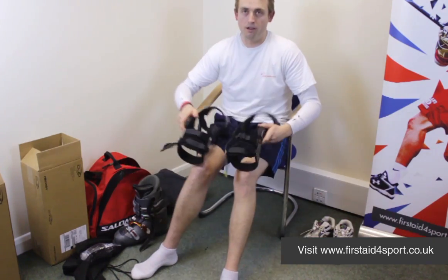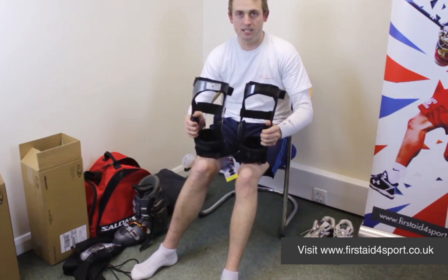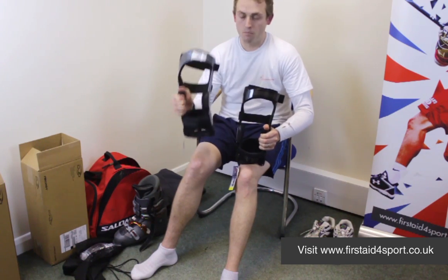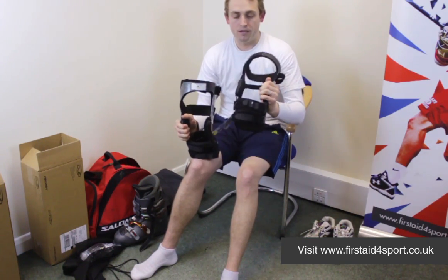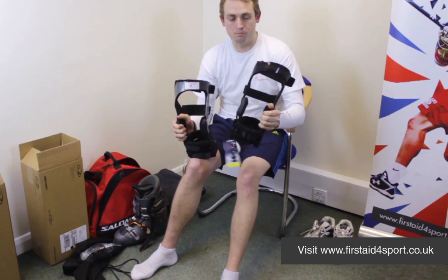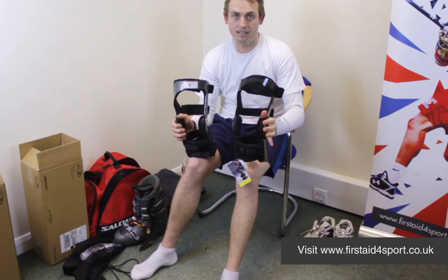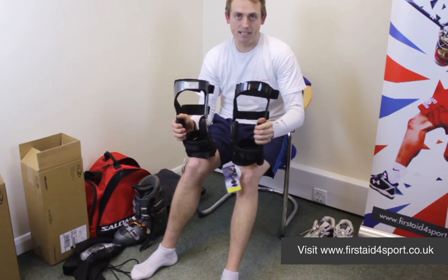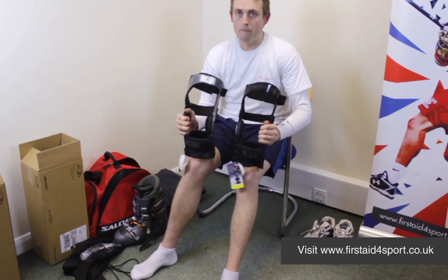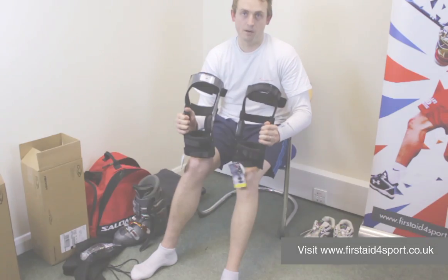So the difference between the two, other than the price: basically the Armour is the stronger brace, it's much more rigid. However, the Full Force is such a good brace — a little bit lighter and a little bit more flexible, so a bit more natural movement. But between the two, both are superb ACL braces.